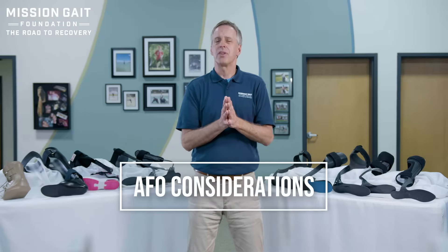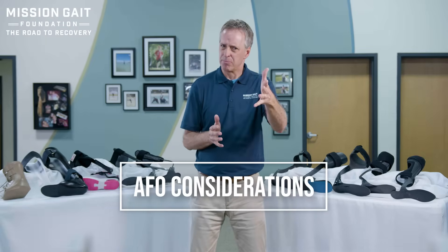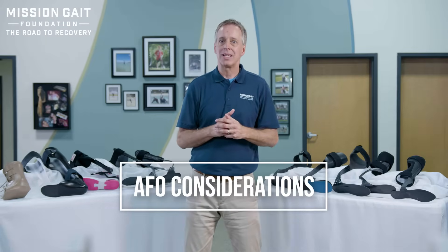What do you need to know when picking a device for a patient? Number one: diagnosis, of course, but also interest in activities. You've got to understand what is the problem, what's the injury you're treating, and also what is their interest level — what are they going to be trying to do? How active are they, and what kinds of activities and stresses are they going to be putting on those braces?